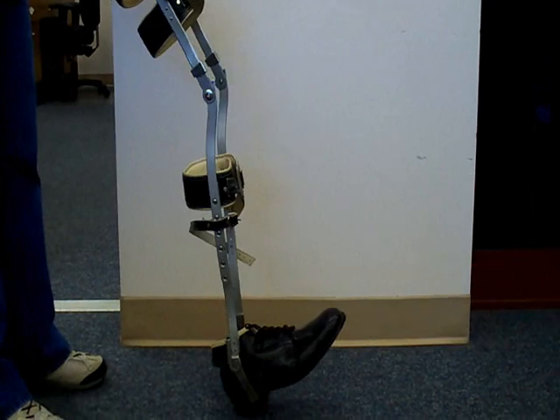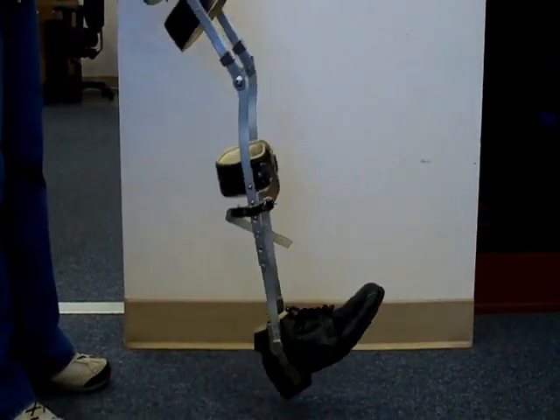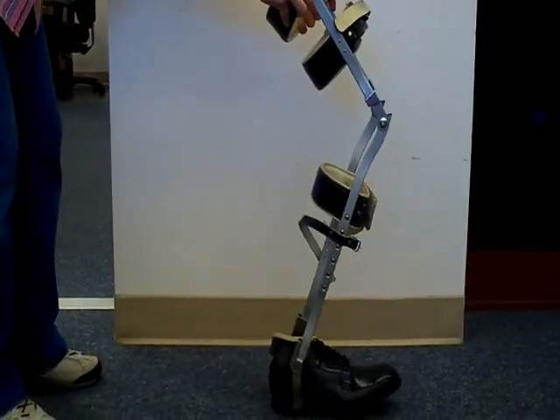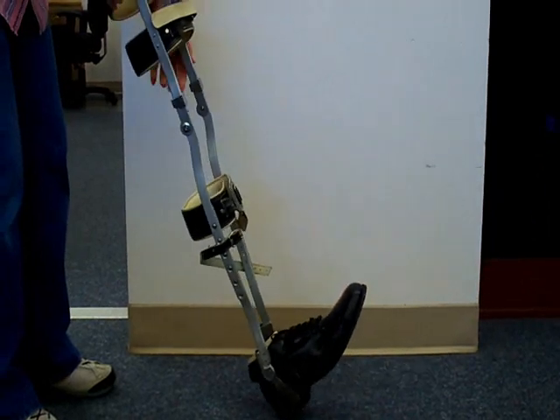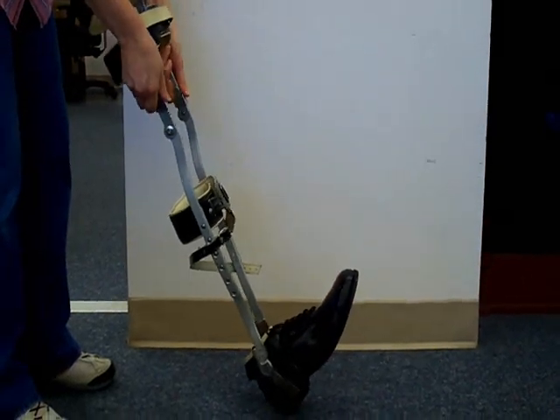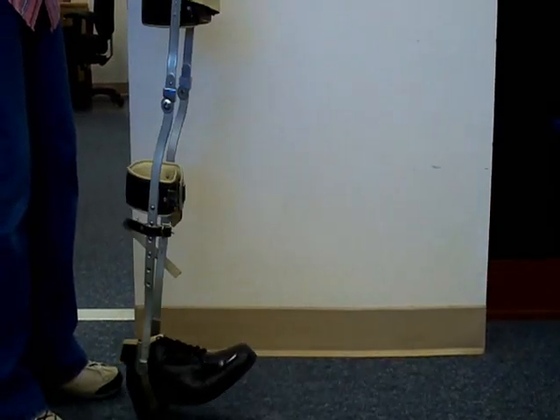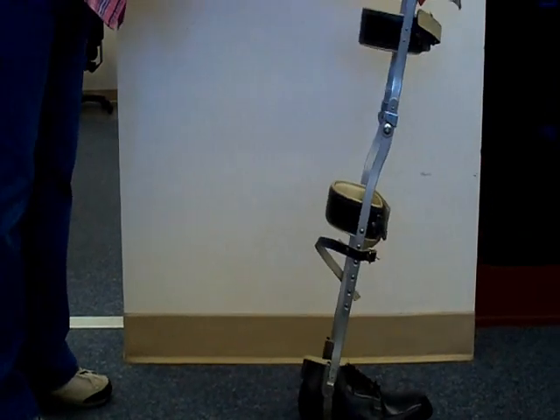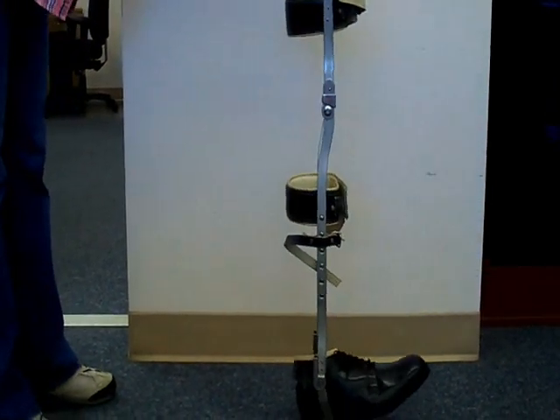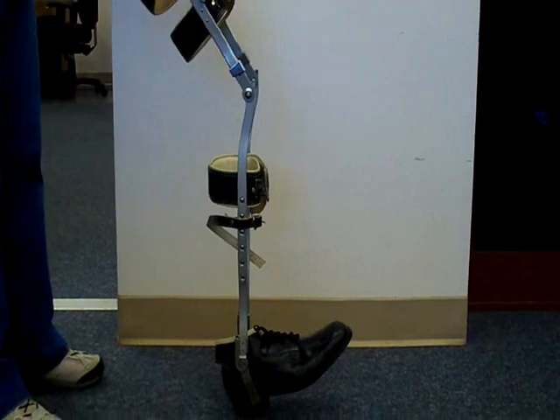The knee joint is supposed to be locked when a person walks with this orthosis, and you can see what happens to the knee joint as the orthosis moves forward and weight bearing is transferred during stance phase. When the orthosis is locked, the knee is stable.